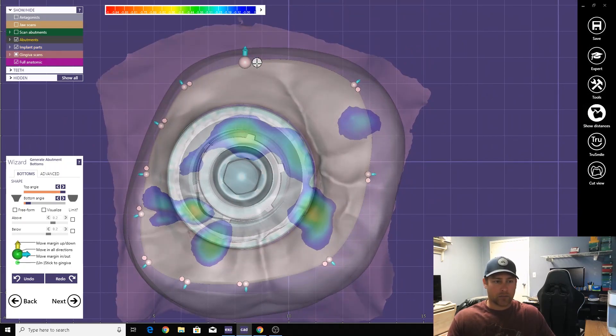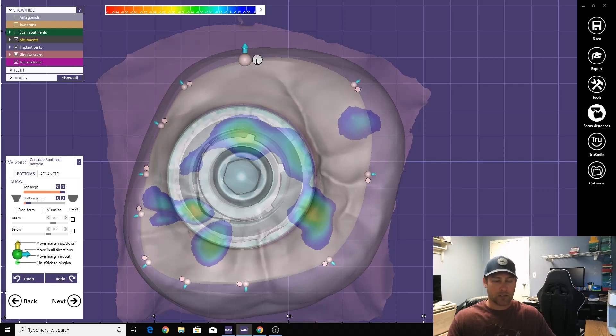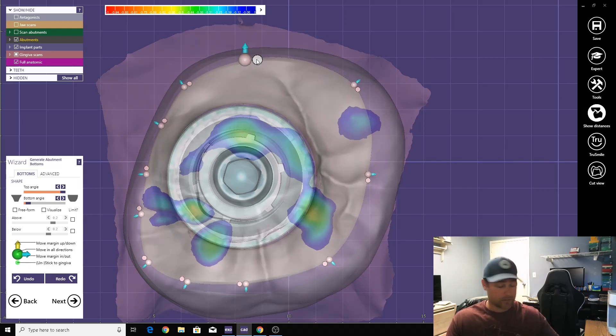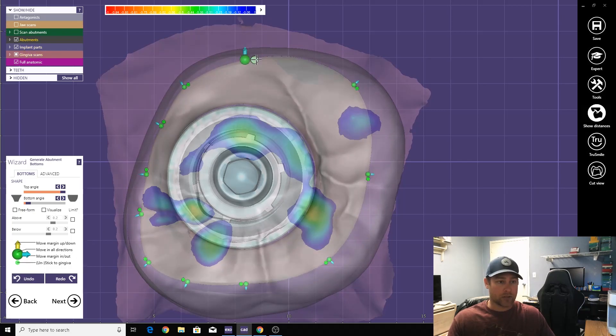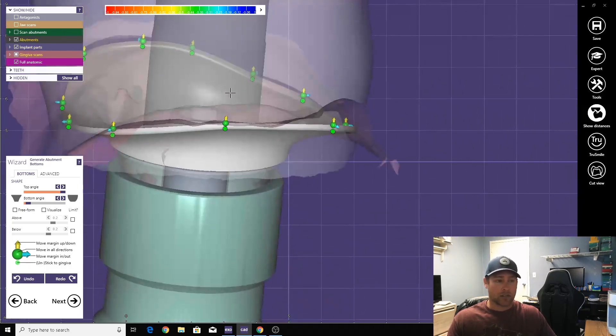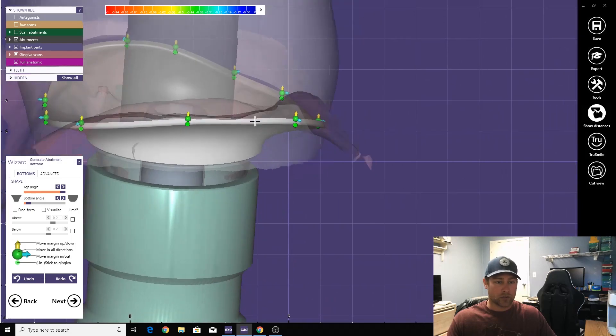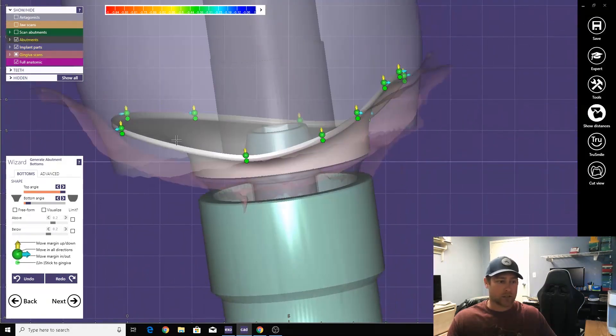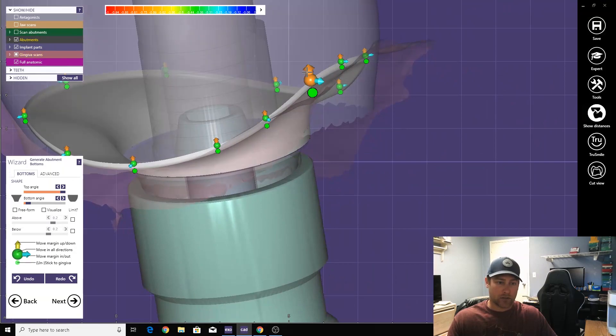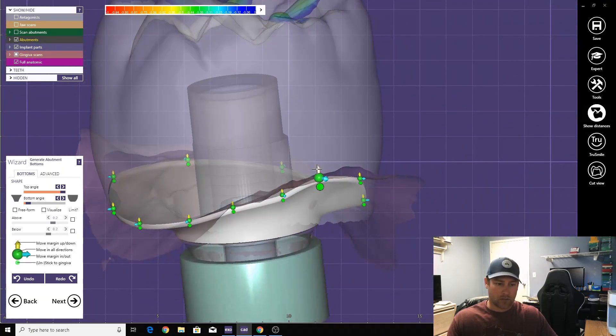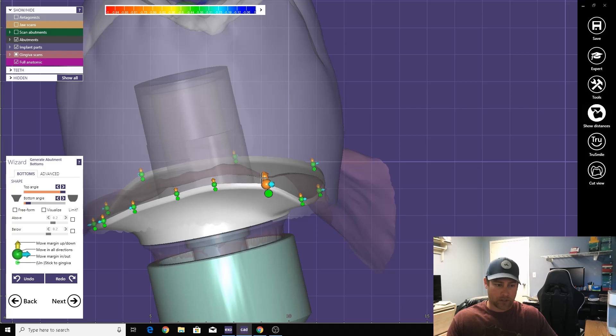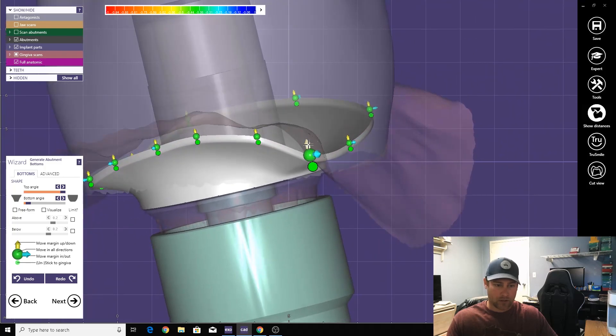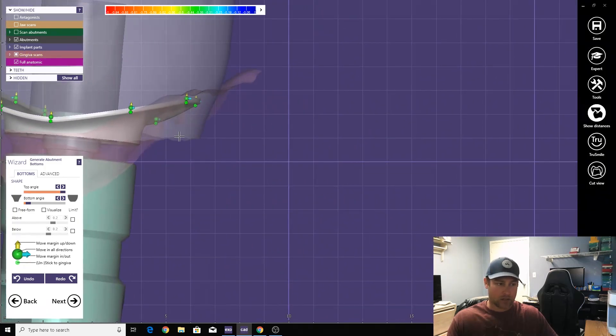All three of them will come unattached. If it's pink, it's automatically attached to the tissue. Green, it's not attached to the tissue, and you can kind of move things a little bit easier, make it a little nicer, more even flow. Especially right here.